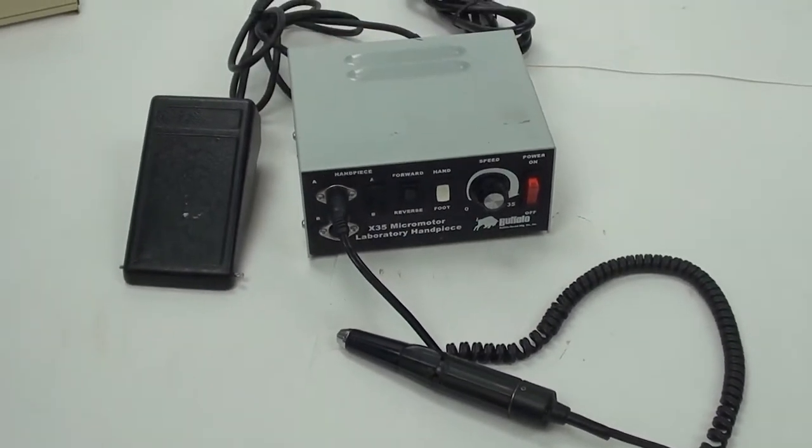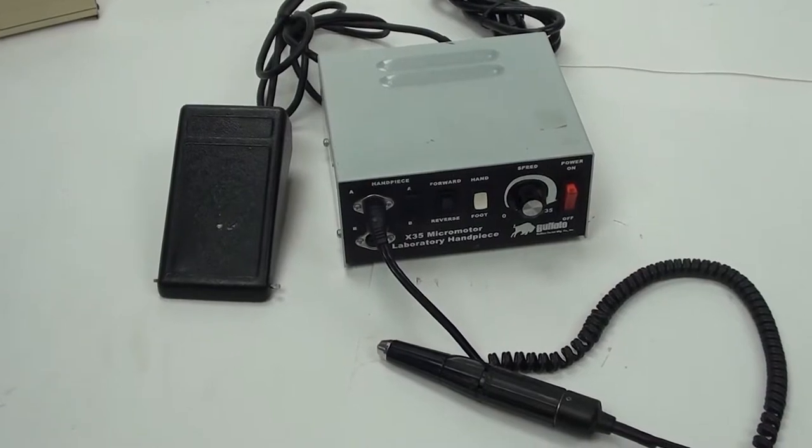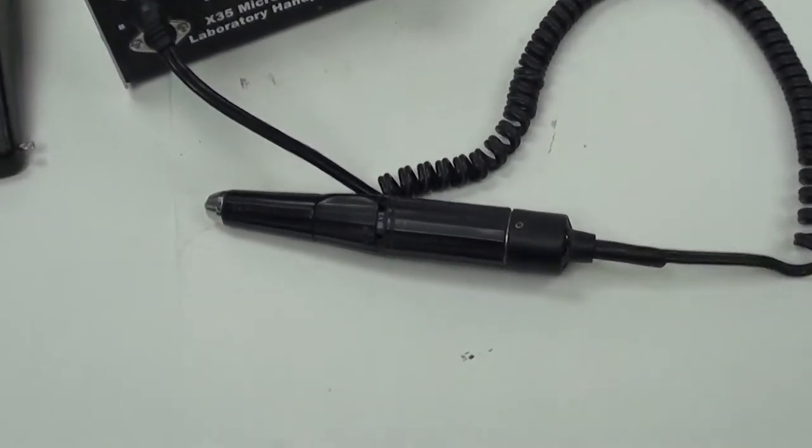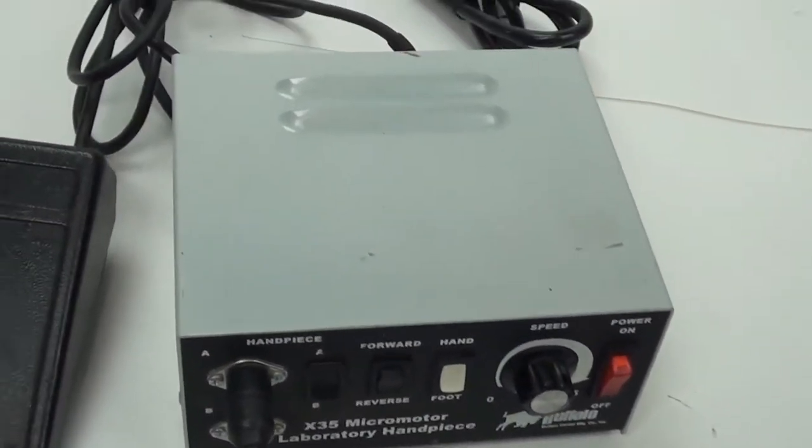It is overall in good working condition, but the foot pedal does not always stop completely. The grinder pencil and the X35 module itself are in great working condition.